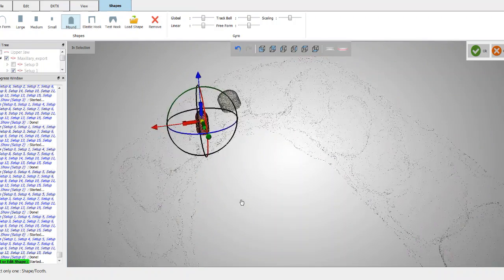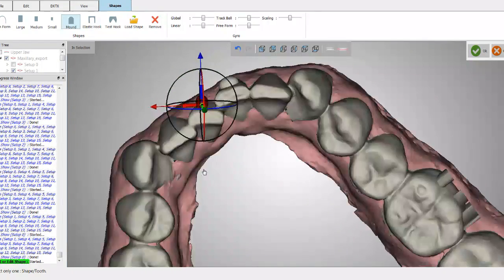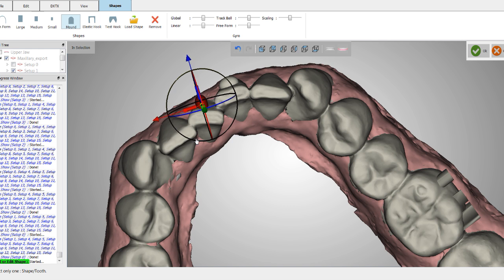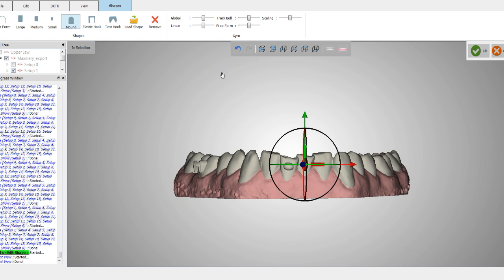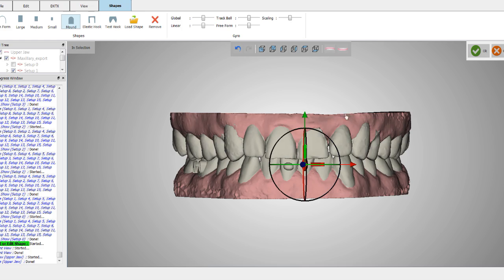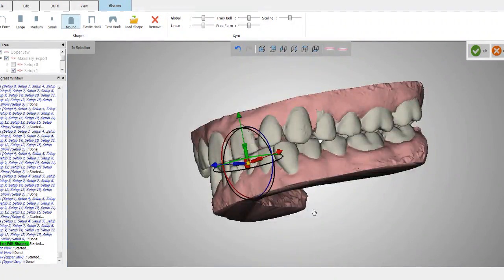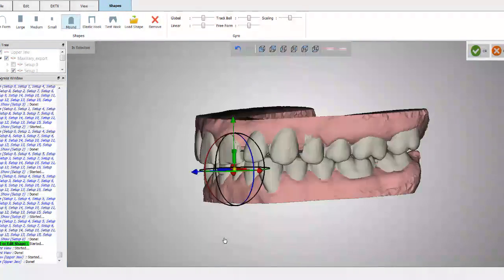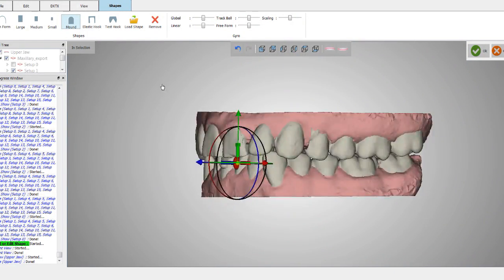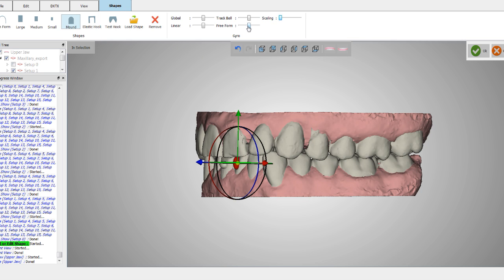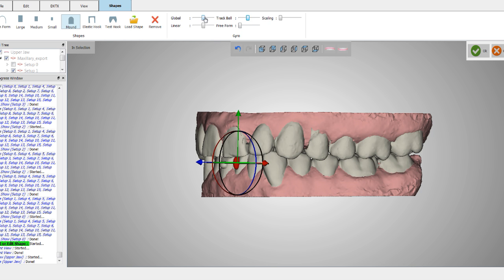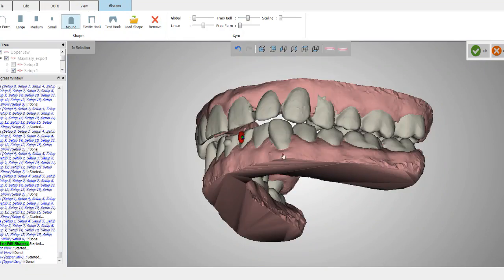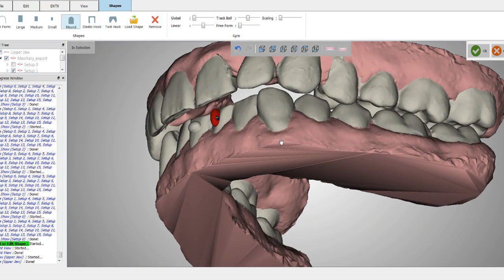And I'm going to rotate around and look at it from this perspective here. And then the last check I'm going to do is just make sure that it's not in the patient's occlusion. So if you have a hard time visualizing, you can simply take this here and you can shrink these down. You can shrink that all the way down so you can visualize just, you can see we've got plenty of room there in the patient's occlusion.